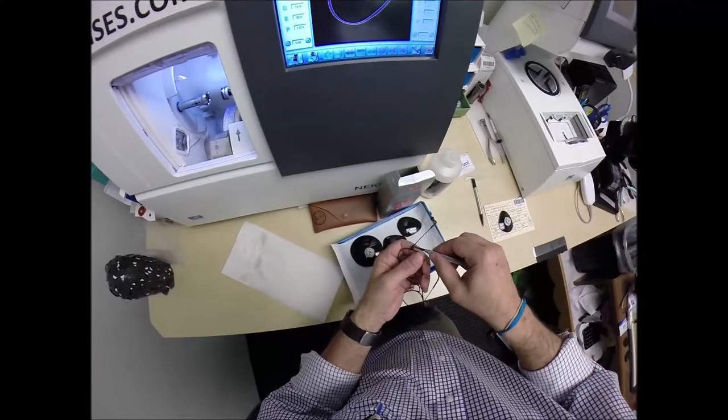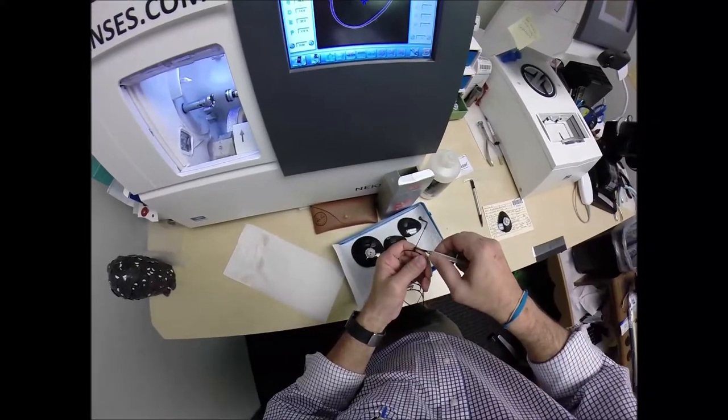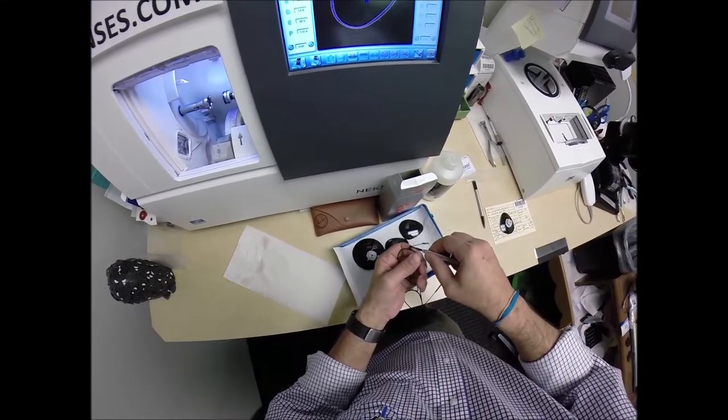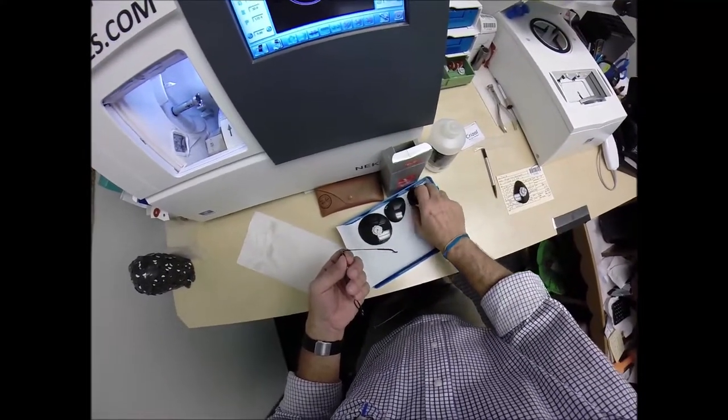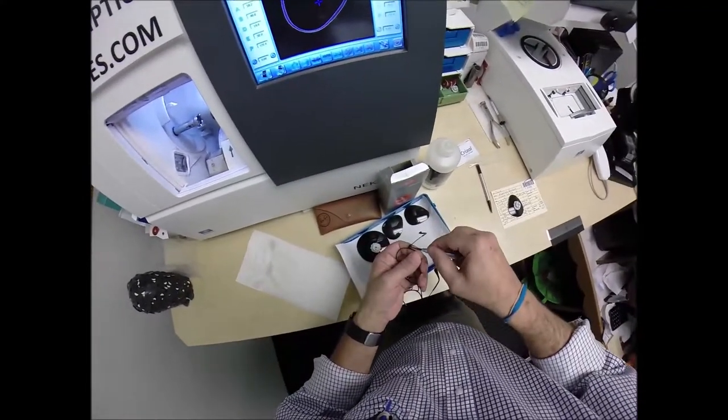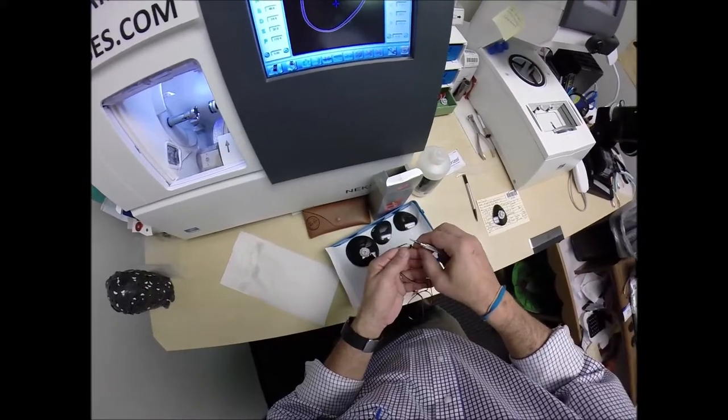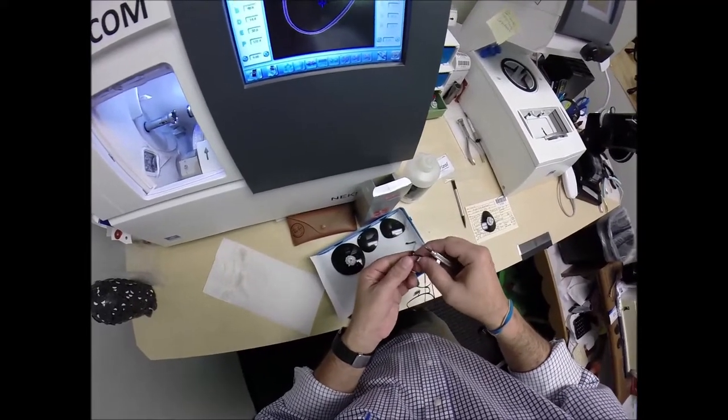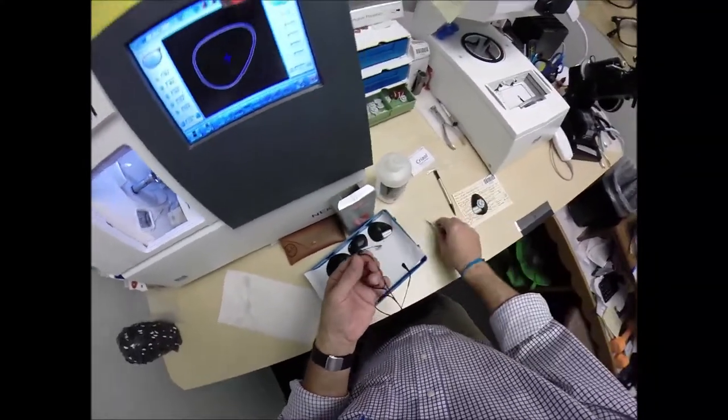Okay, here's the thing. Loosen that hinge screw. I can't say it enough. Just enough where the whole thing does not come out. If it does come out, it'll land on something soft and not bounce. I'm going to loosen this one up. Hopefully all the way without taking it apart. You'll know when it comes off because this temple would just fall right out of there. I'm going to take... Oh, the lens.